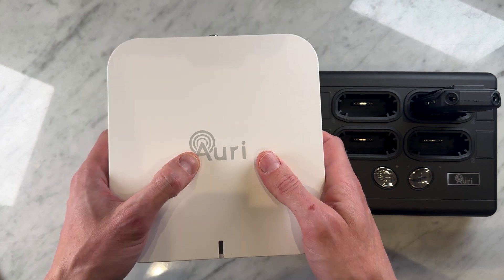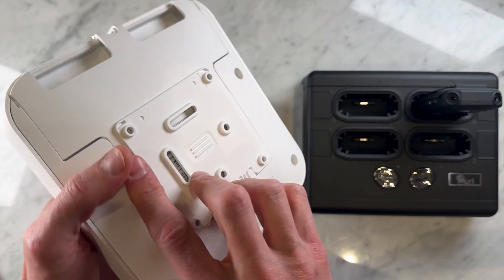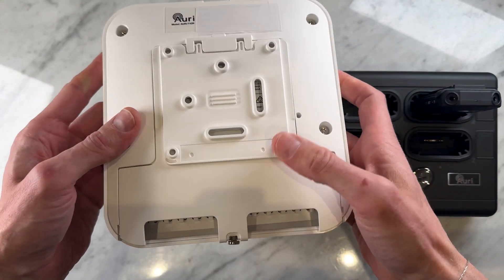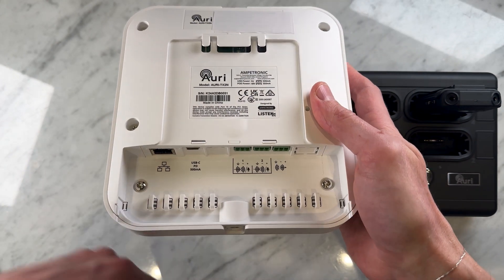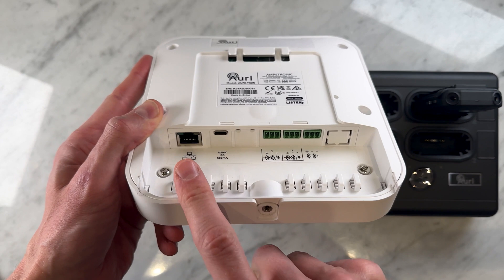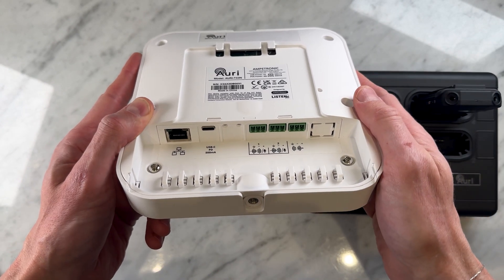The single transmitter is equipped with two Bluetooth 5.3 radios, allowing for flexible routing options and the capability to broadcast separate audio streams simultaneously. Plus, you have the ability to choose between analog mic, line inputs, or Dante inputs, with individually switchable 24-volt phantom power supporting mono, stereo, or dual mono configurations.